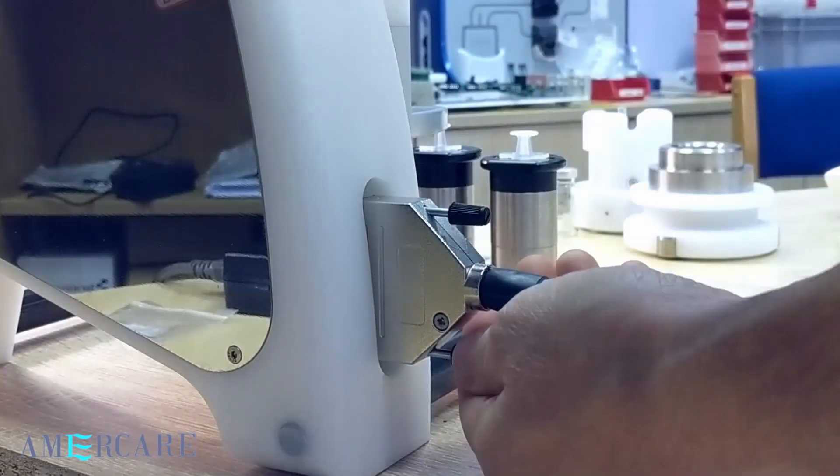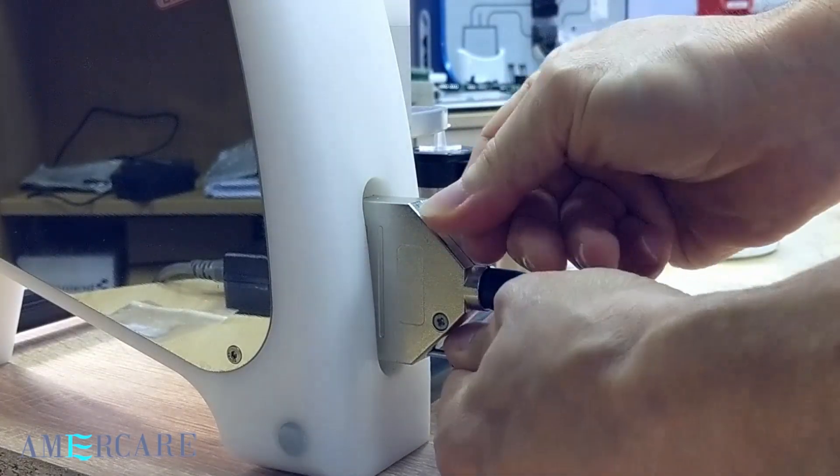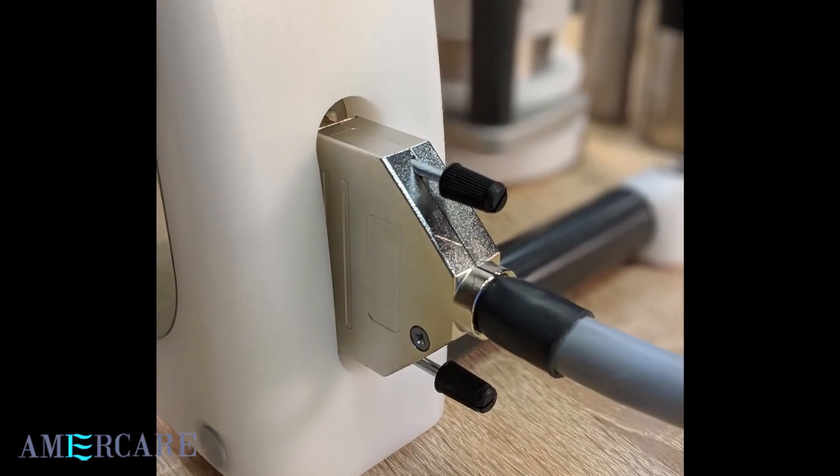The correct connection of the cable at either end is very important. If this is not correct, then the unit could show errors.